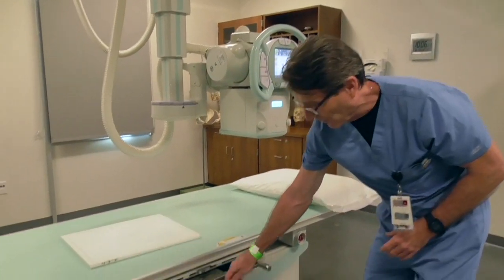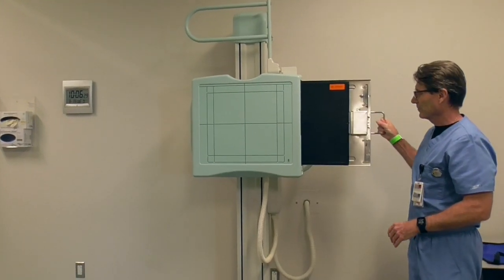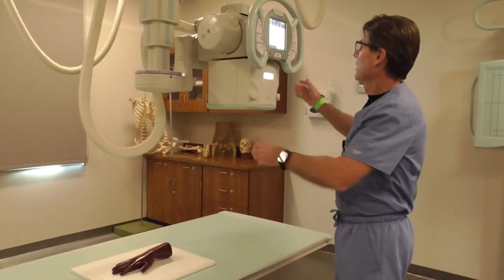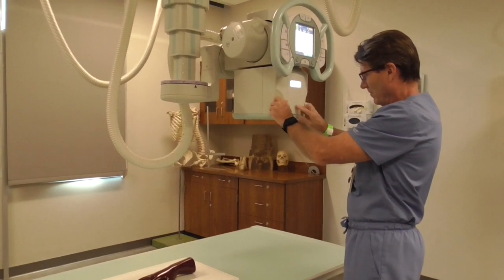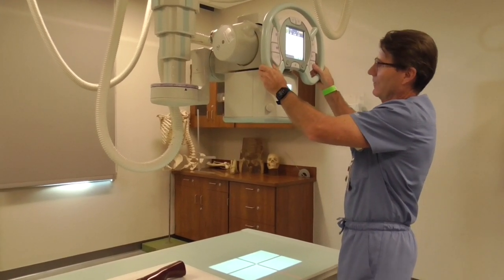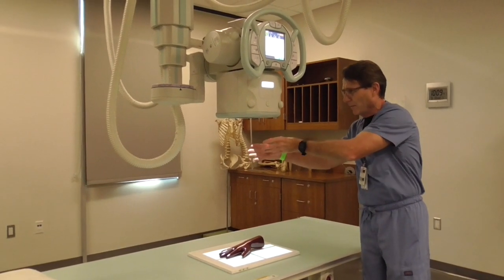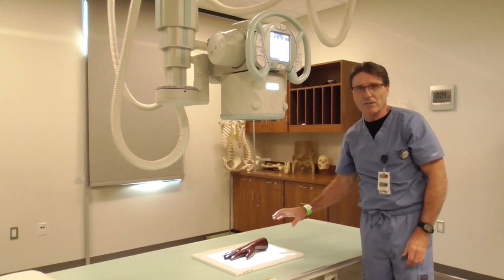Images can be done solely on the image receptor, or the image receptor can be placed into a table or what we refer to as a wall bucket. As you can see, there is an image receptor already in this one. If one is simply using the image receptor to image a body part, you can place the body part on the image receptor and move your light field over to the body part. The light field projected from below the x-ray tube represents your field of x-radiation, so wherever you see light, you'll see x-radiation projected onto the image receptor and body part.